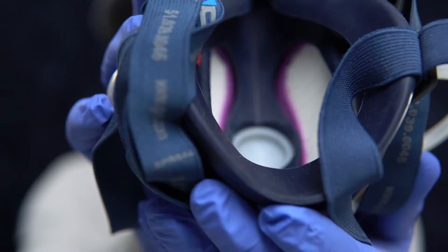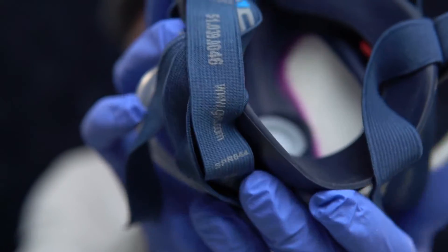And then there's the GVS Ellipse. I find that the GVS has a very hard, not very squishy seal that doesn't work great for me. I find that I have air leaking through the chin here. It's sort of erratic, and the last thing you want in the fit of your respirator is erratic fit.